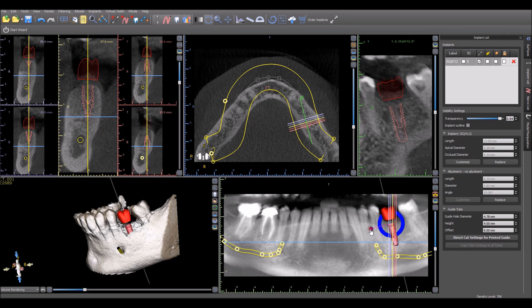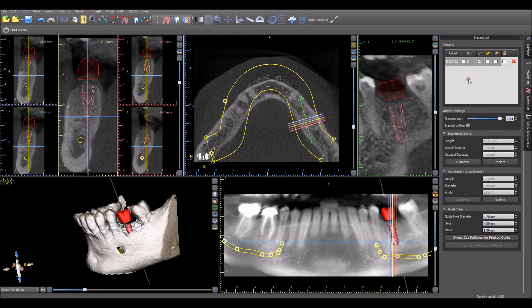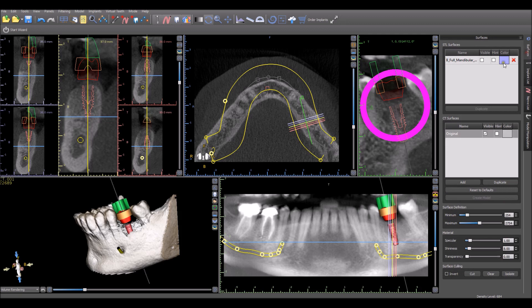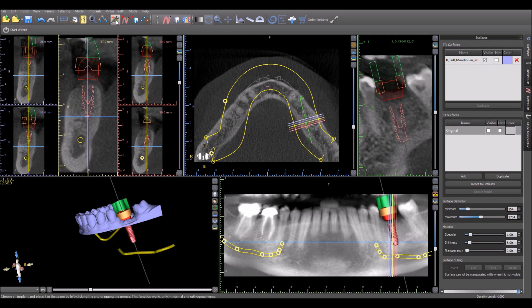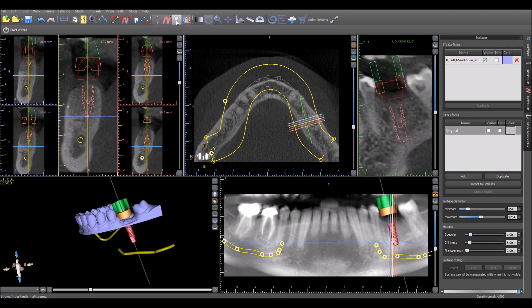Once you're done with the placement, you're happy with the treatment plan, then we move on to making the surgical guide. To make the surgical guide, what we want visible on the screen is the software guide tube, which we go ahead and turn on by checking the checkbox. And the model, which we go to Surfaces, we turn on the model, we turn off the CT scan. We can also turn off and hide anything that we want via the toolbar up here. The icons with the red pluses add an implant, a nerve, a virtual tooth. And the ones without just toggle them on and off and hide them.